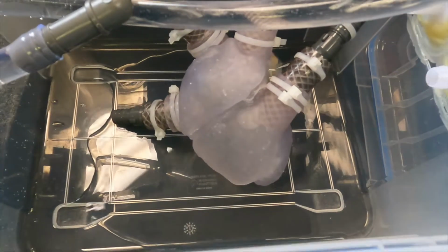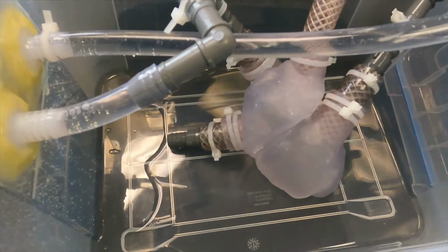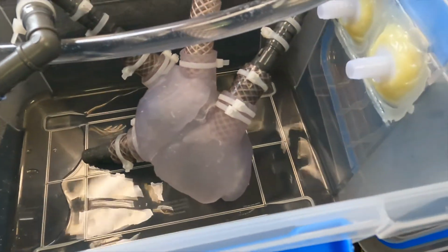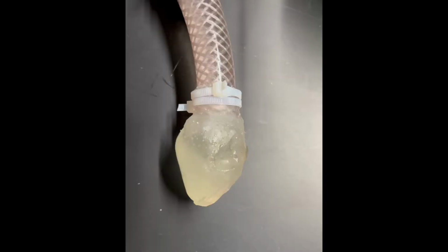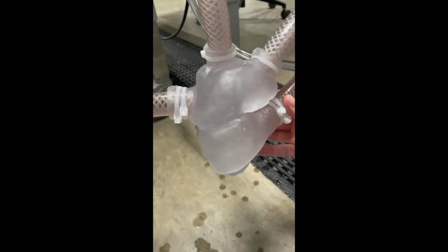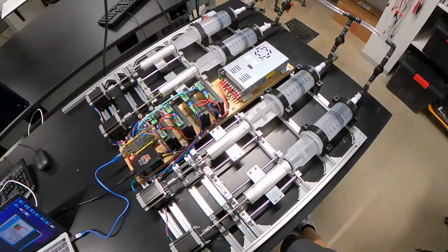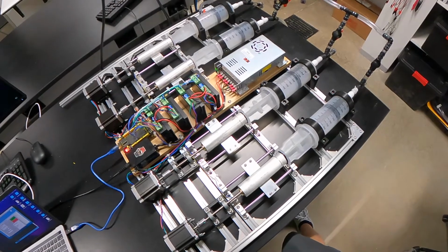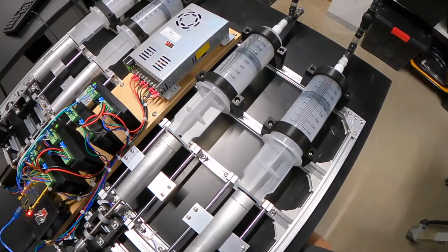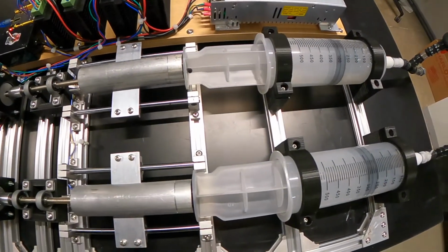As time and availability for an MRI can be costly and access to volunteers can be difficult, there is a practical need for a cardiac phantom for rapid and independent imaging capabilities. With the Phantom Cardiac Pump, the device gives the ability for MRI researchers to replicate the effects of a human heart by allowing for speed, volume, and phase control. This device uses stepper motors, syringes, and an Arduino at its core to create the pumping system.